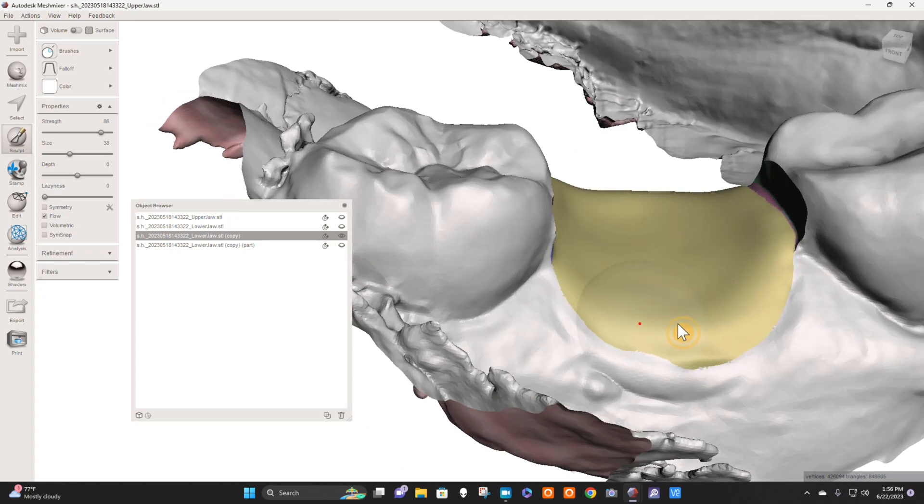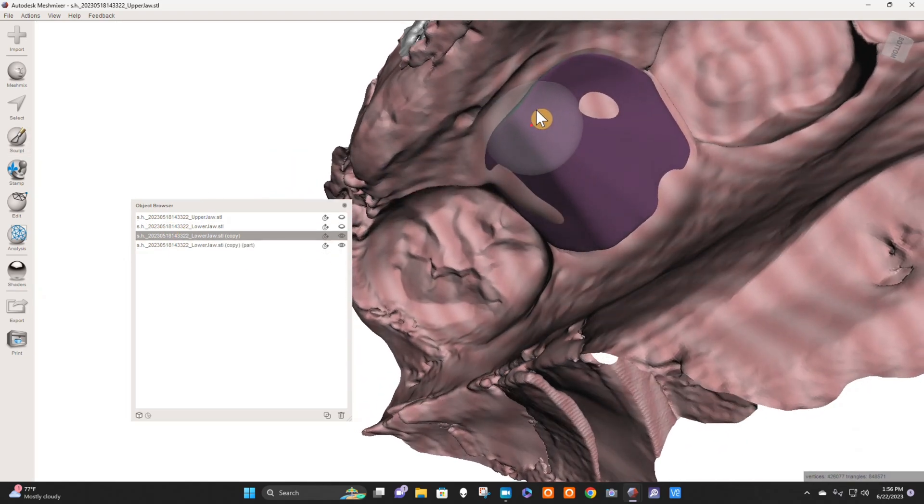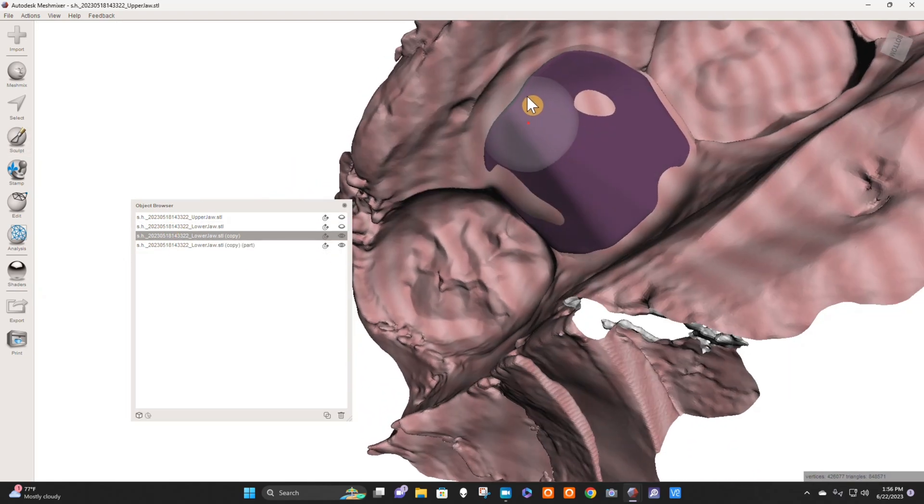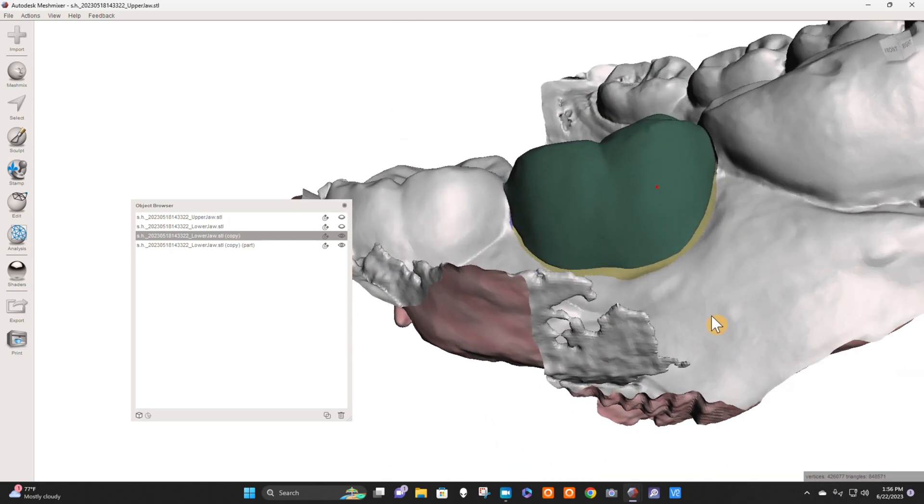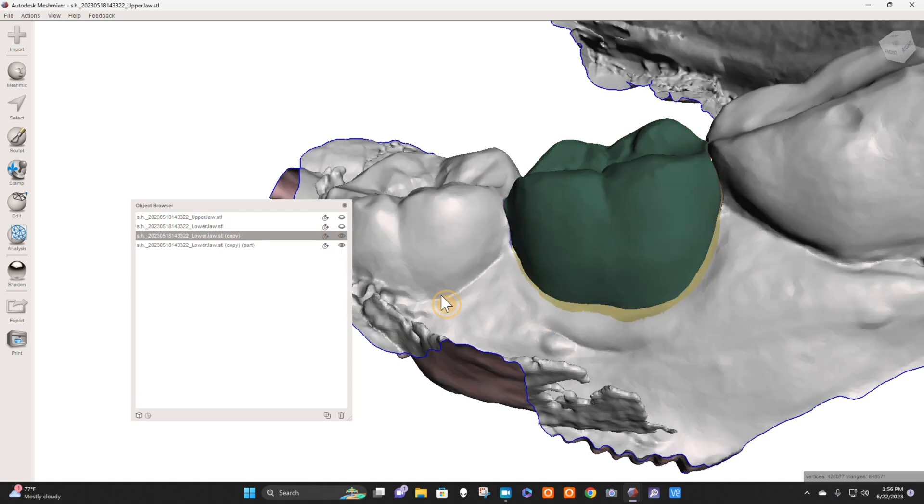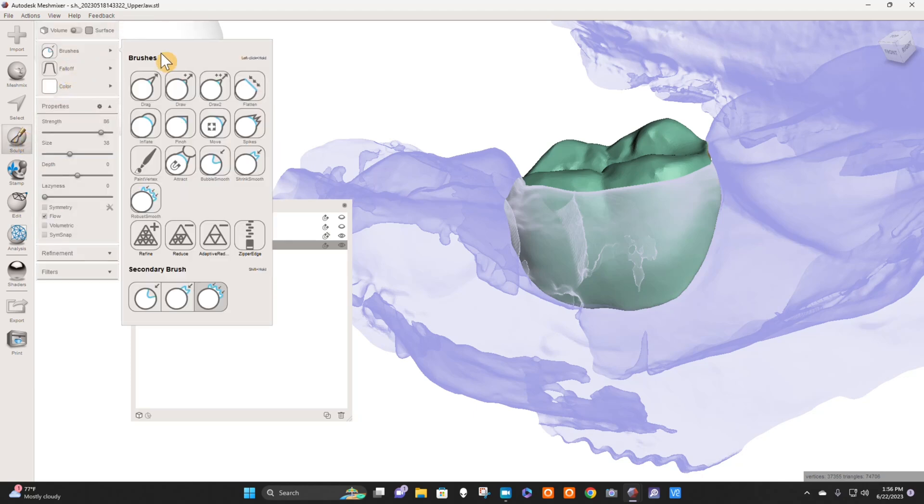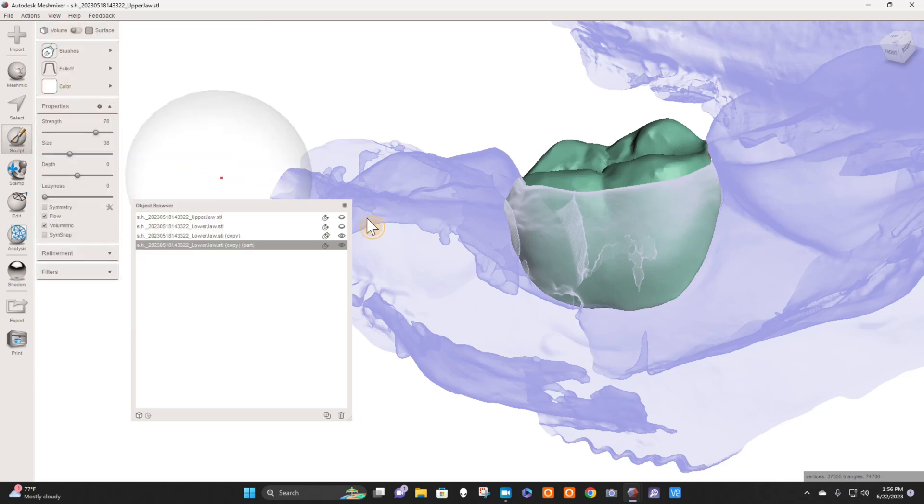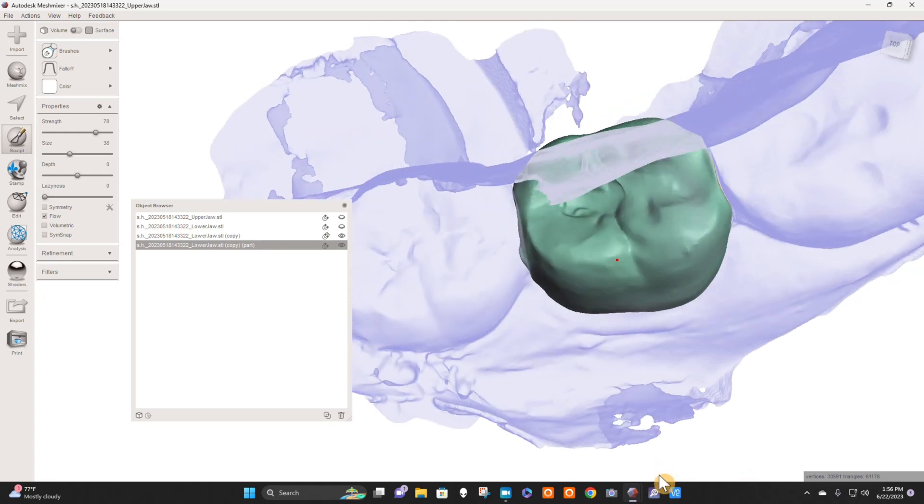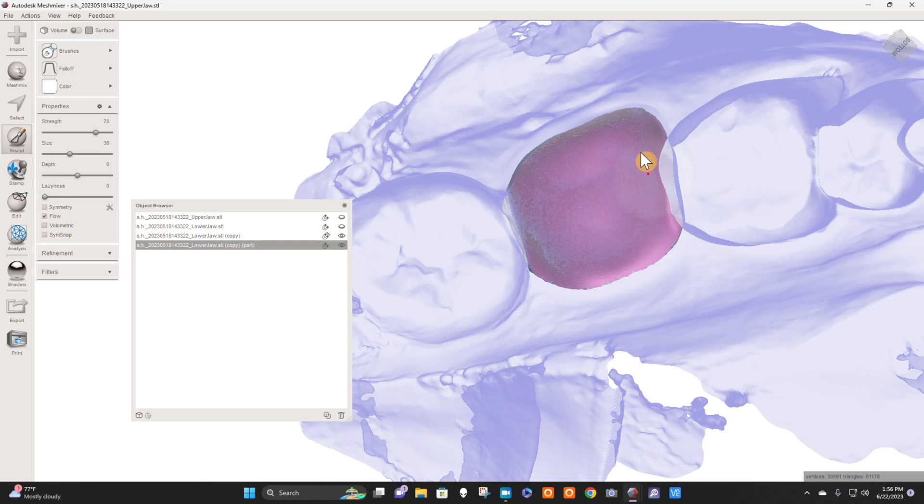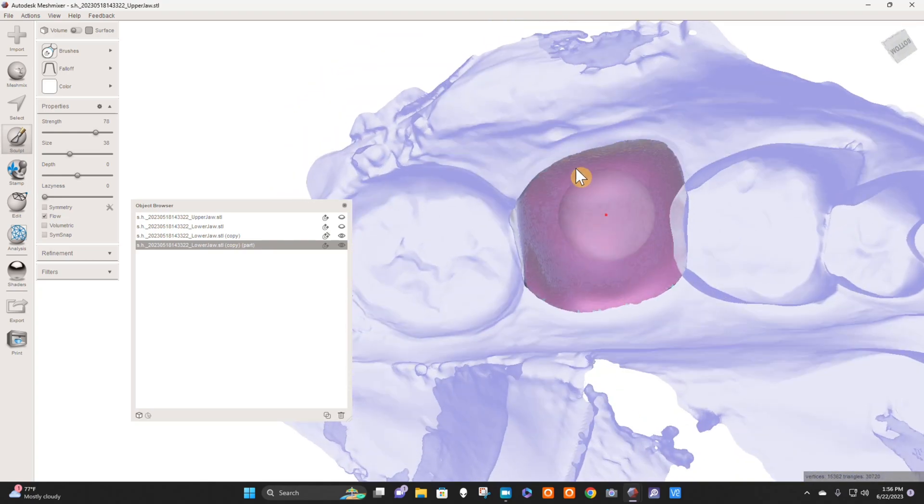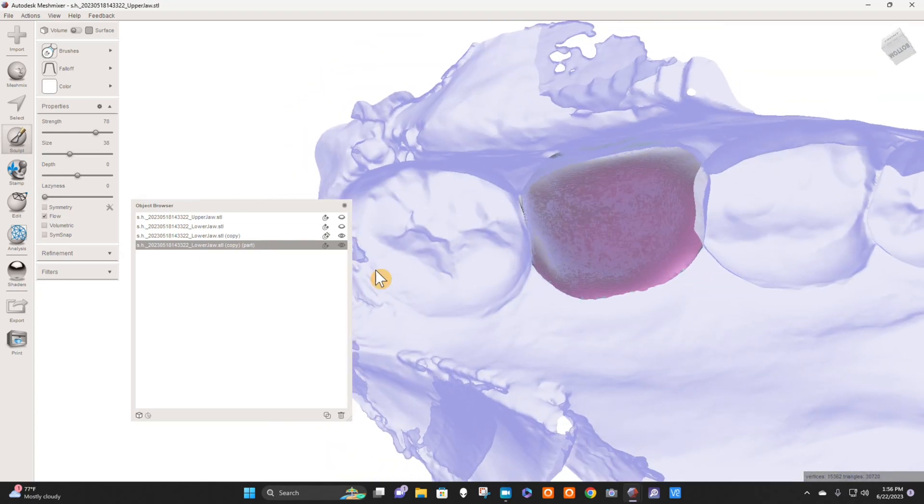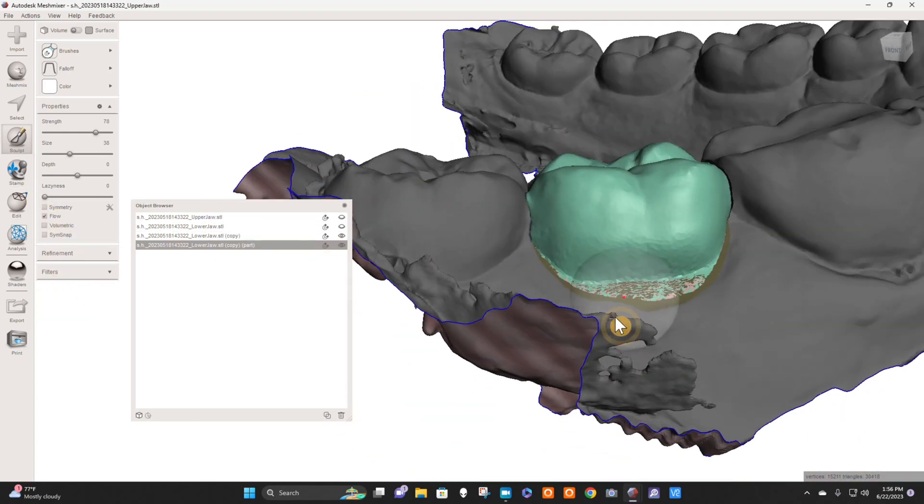So now we have our tooth and our extraction socket. Now the tooth looks like it's pressing into the socket, so what we need to do here is to get them to be equal. Turn on the model and turn it magnetic, click on our tooth, and go to Sculpt Brushes, Attract. Turn volumetric off so it doesn't distort the fitting surface, and just get it to be coincident. Now it's going to create perfect adaptation to that model. And that is it. So we're going to undo that magnetic, and see, it's hitting perfectly there.